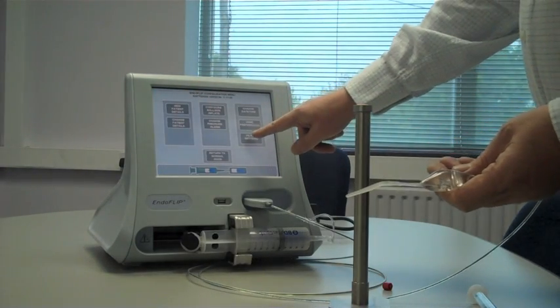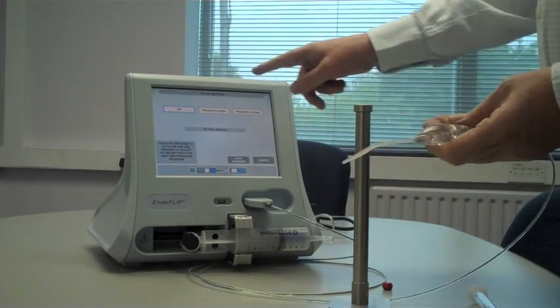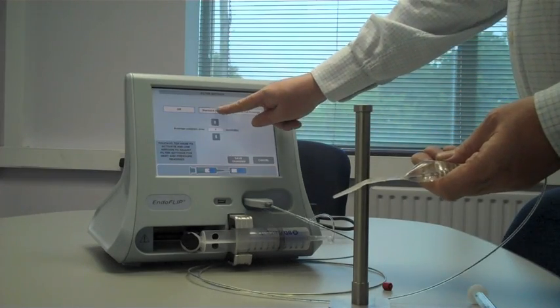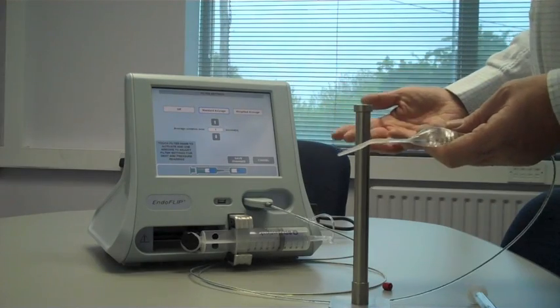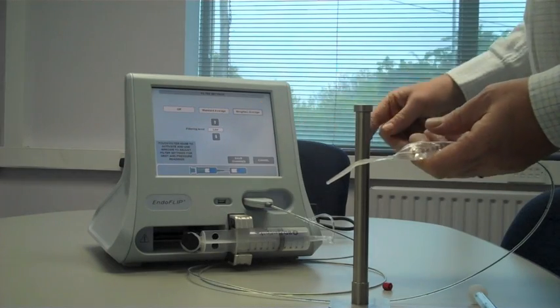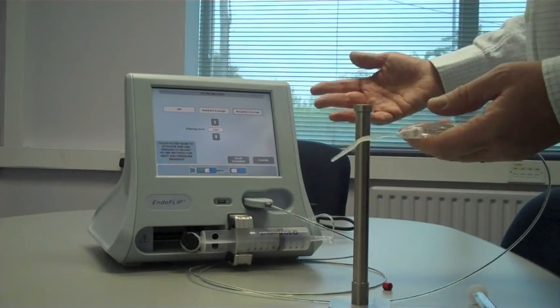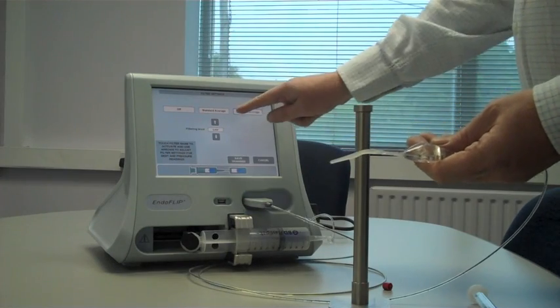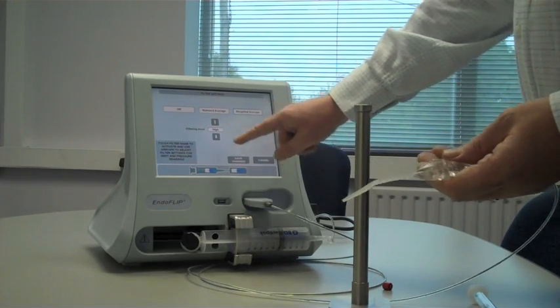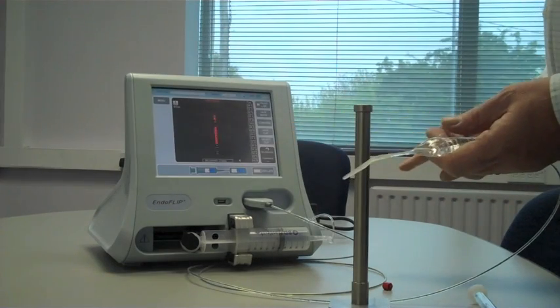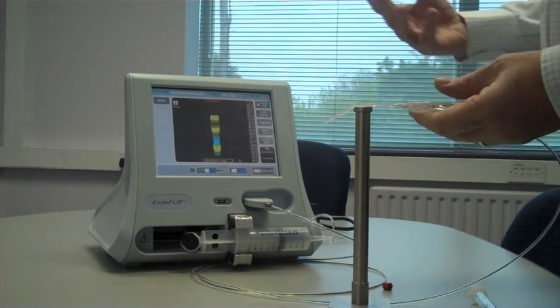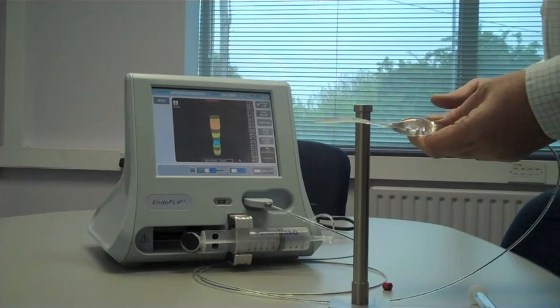And finally, filter settings. The filter is off here, and if you want to smooth the signal, you can have a standard average, which essentially is an average over X seconds, or you can have a weighted average, which essentially is over a number of samples. And this is the one we use most often, and typically people set it at high. So weighted average high will be the most popular setting. And you can see now that the image moves a lot more slowly than it was moving before.